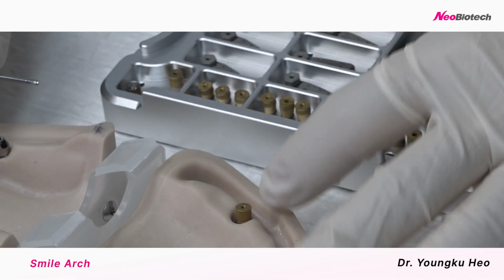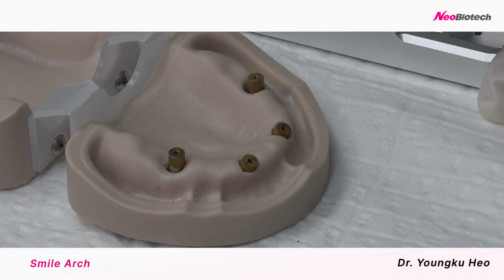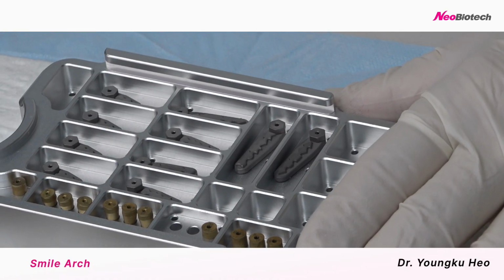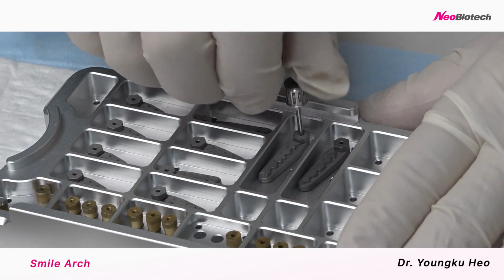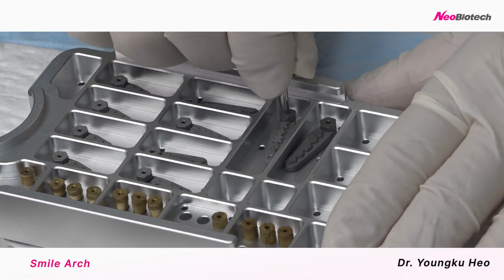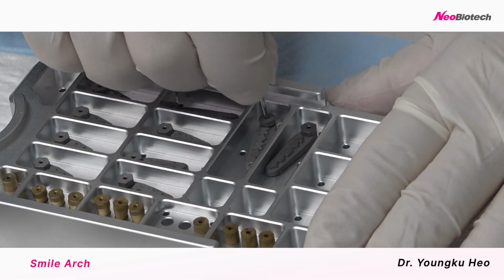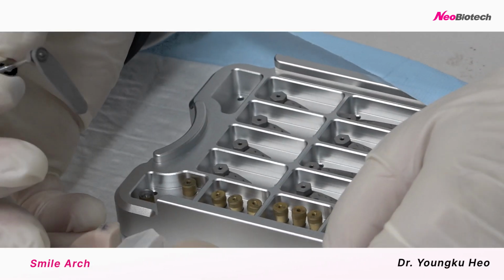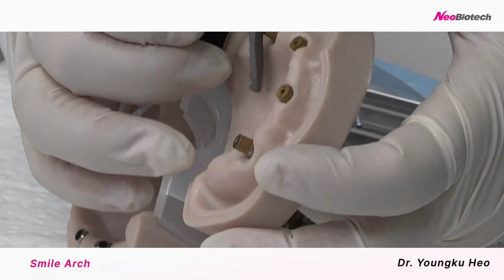Okay, on top of this scan post, we can choose the scan bar, which is the longest, middle and short. Maybe you can use this longest one, like this, the posterior first.